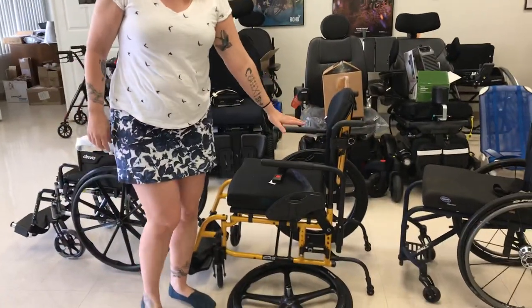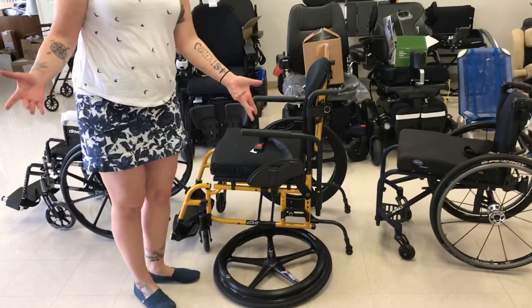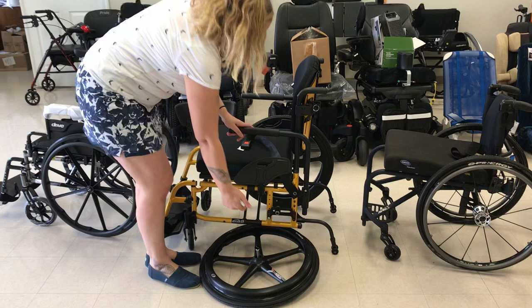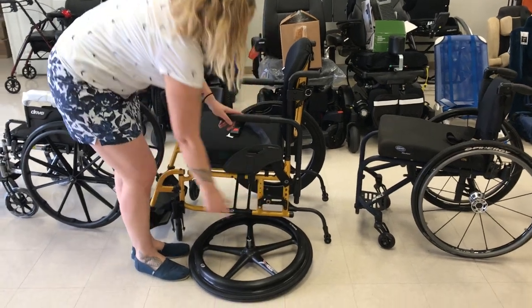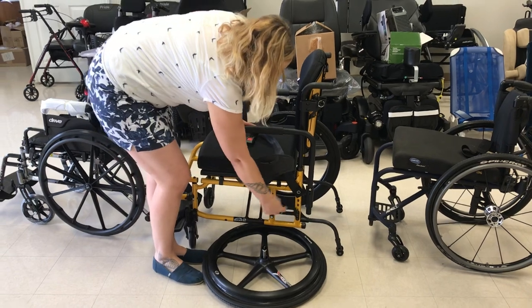This on the other hand is what's called a K5 ultralight wheelchair. And as you can see, the wheel is removable — it's just a push button — but you can see where it goes into the chair is on this axle plate, and that gives us some maneuverability.